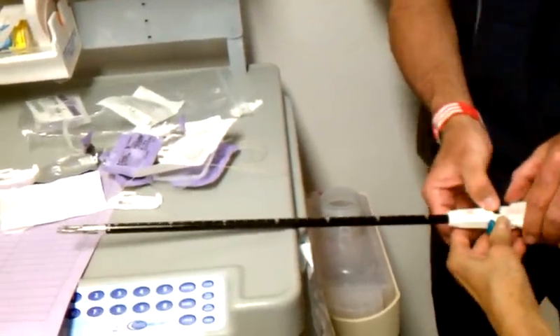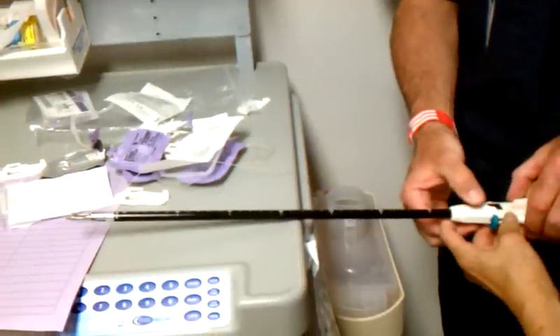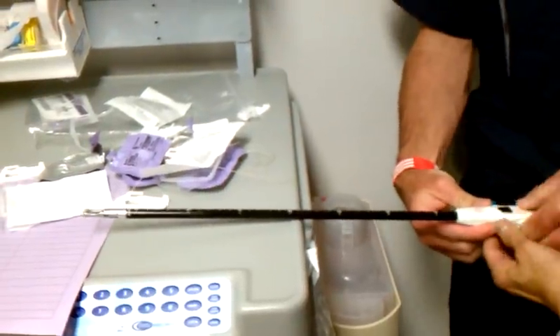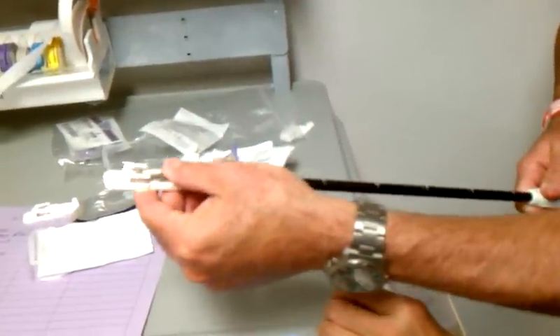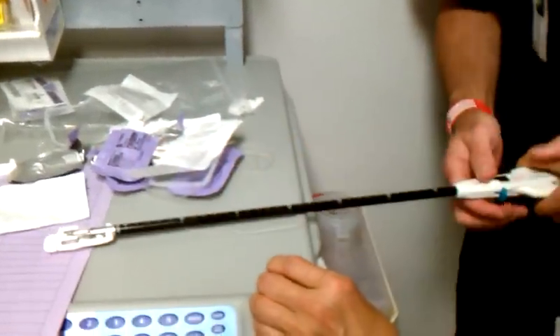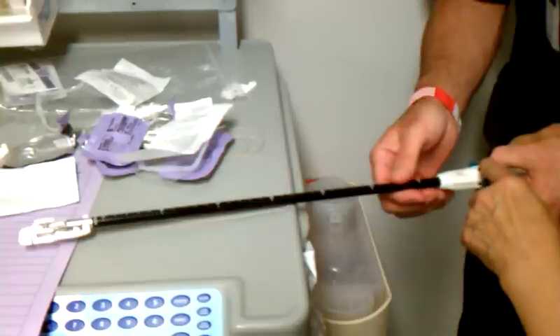Let's just do this though. You totally did it, Jenny. You did it. But I want to try and save the needle. You want to try to save the needle? So now if we push this down like so, now let go of the handle. The pop-up — that's it. That's how you unload the needle.